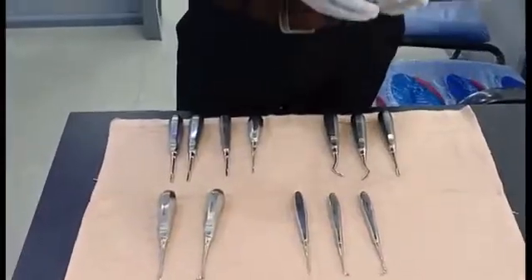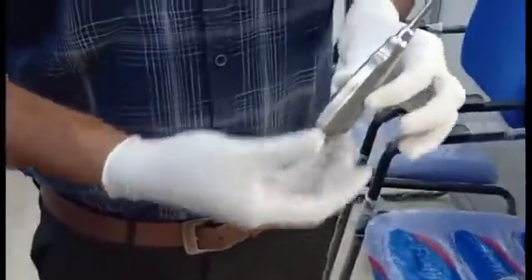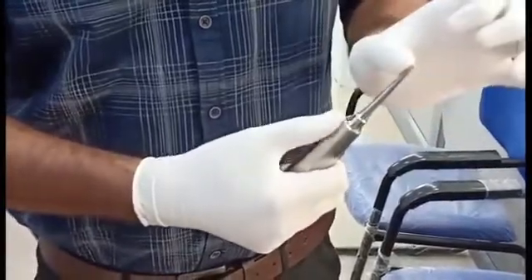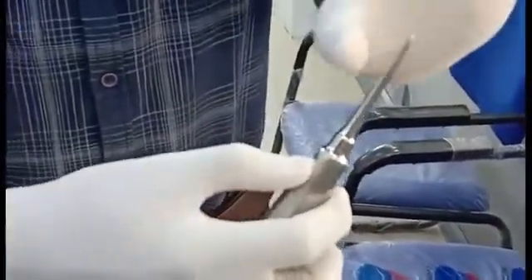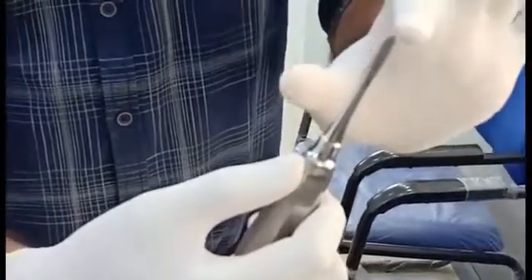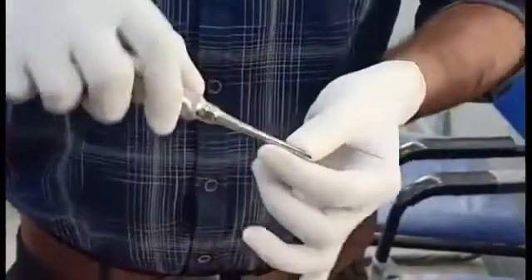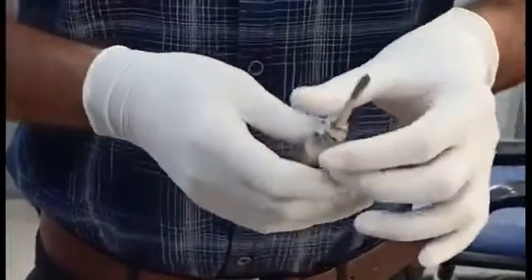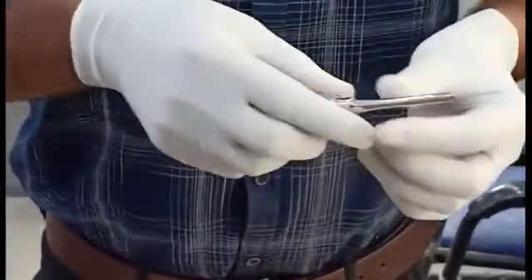The first one we have is the straight elevator. The basic parts of an elevator are the handle, shank, and blade. The shank connects the handle and the blade. You can see the apex is little pointed, which makes the extraction easier.